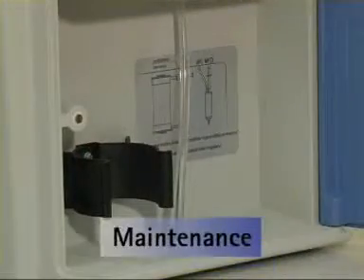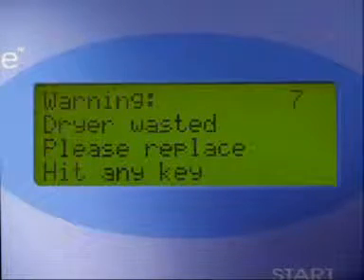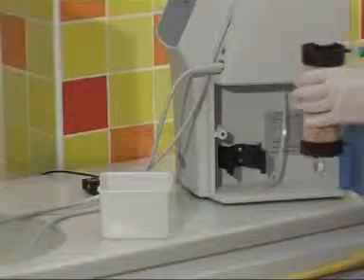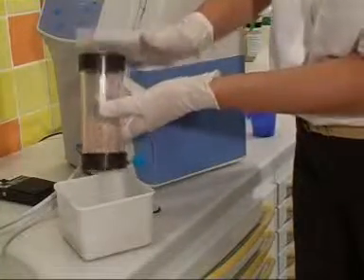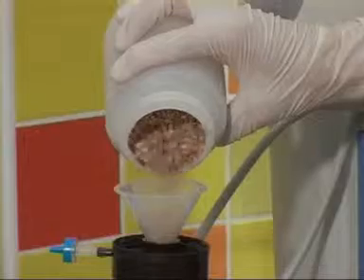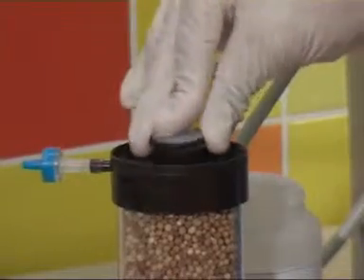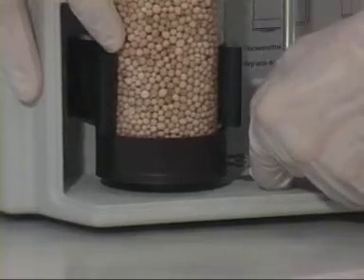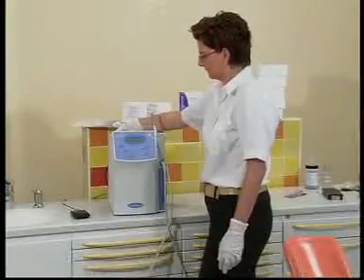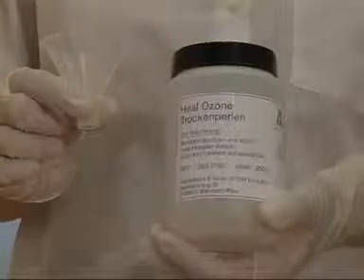After a certain amount of time you will need to replace the desiccant — the system will inform you when this becomes necessary. Detach the end of the hose from the lower connection piece and remove the dryer from its holder. Detach the upper stoppers and dispose of the used desiccant in accordance with relevant local and national waste disposal regulations. Place the funnel over the dryer and pour in the new desiccant until the dryer is full. Put the stopper back in the air dryer to seal it, fit the dryer back into its holder, and fit the end of the hose back onto the lower connection piece. Do another test run and you can continue. Please note: the desiccant is obtainable from your HELOzone dealer.